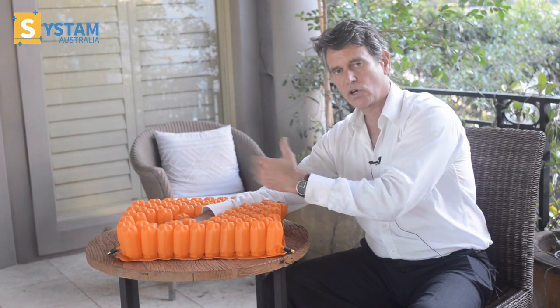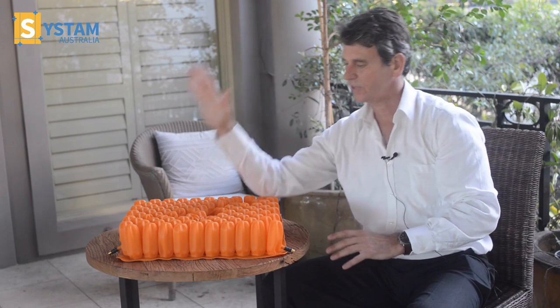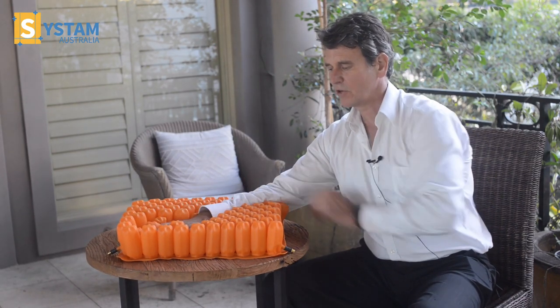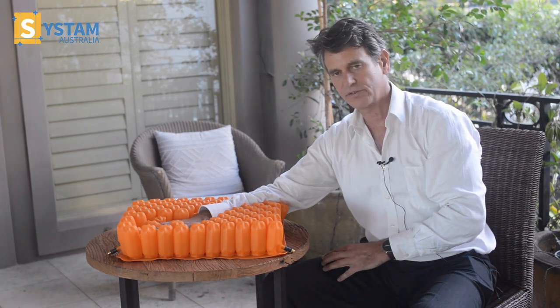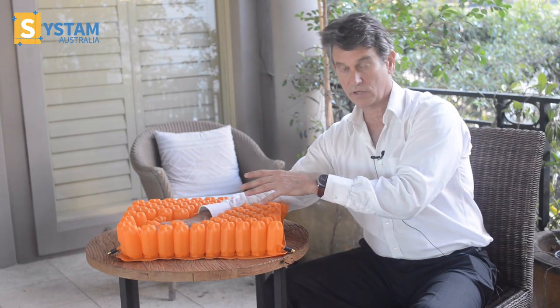With the row and column set up of the structure, it allows collapsing of the cells around it. So when the bottom is placed into the cells, the cells beside the bottom aren't collapsing — it gives much more comfort feel and a greater stability. This is one of the beauties of the design of the Polyair Cushion.